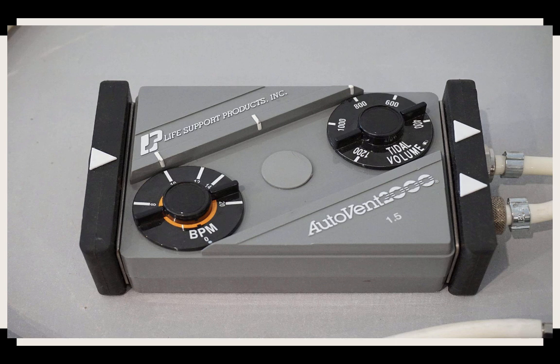We won't be talking about these little pieces of you know what, because they have, look at that, two settings. They've got breaths per minute, they've got tidal volume, and you can just click between the two settings. So you see there on tidal volume, we've got 800, we've got 600. This dial just goes from 800 to 600. There's nothing in between. It just clicks from one to the other. You'll see these a lot just on pretty typical ambulance units, but we're not going to be talking about these because they are worthless and useless.